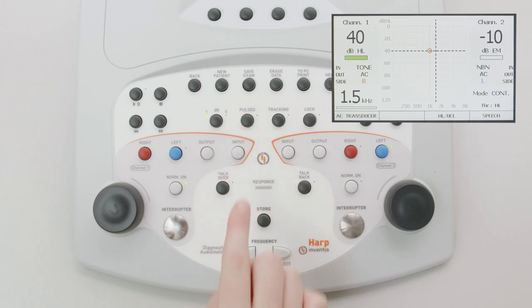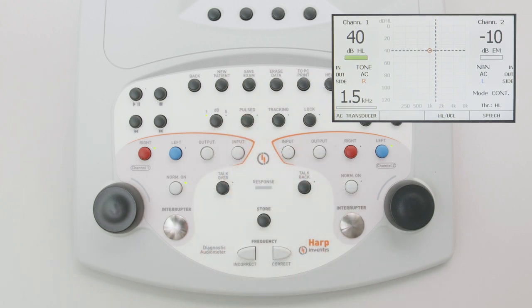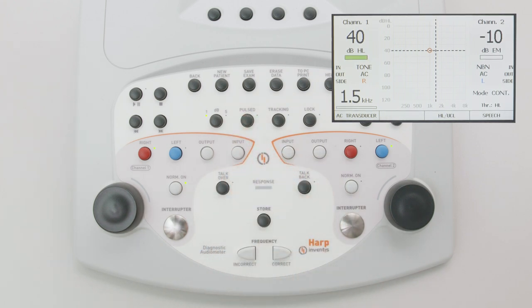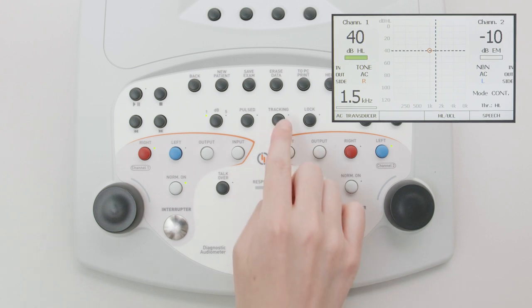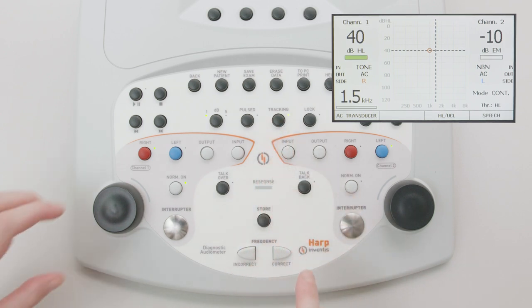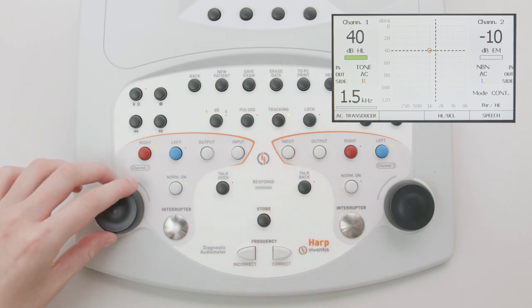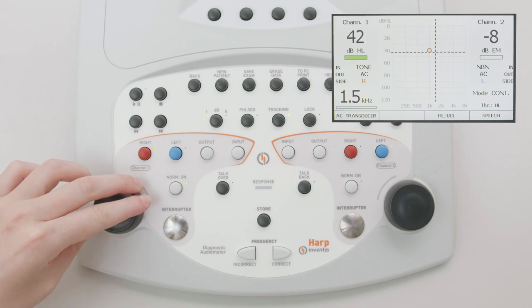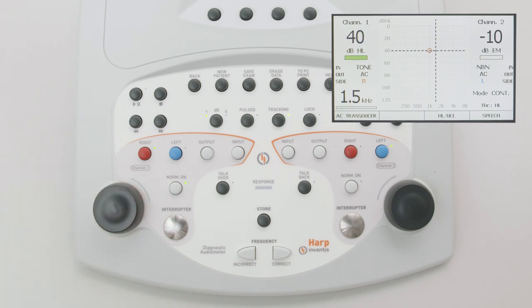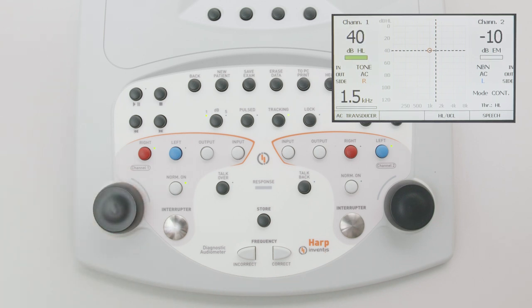The pulse rate can be selected with the corresponding function key below the screen. When the tracking option is selected, the difference between the intensity of the stimulus and masking signals is maintained constant with any variation in the intensity of the stimulus signal.